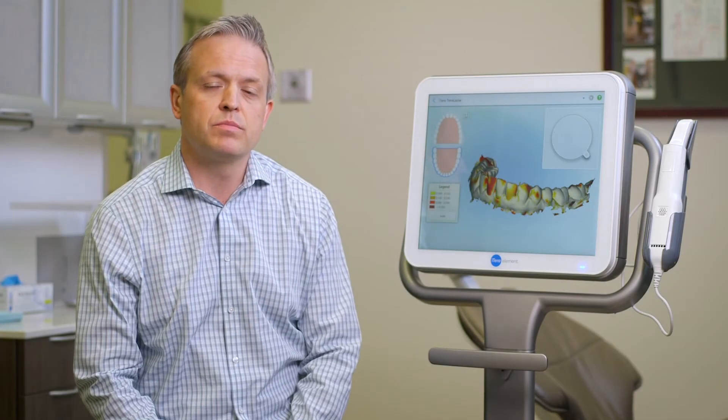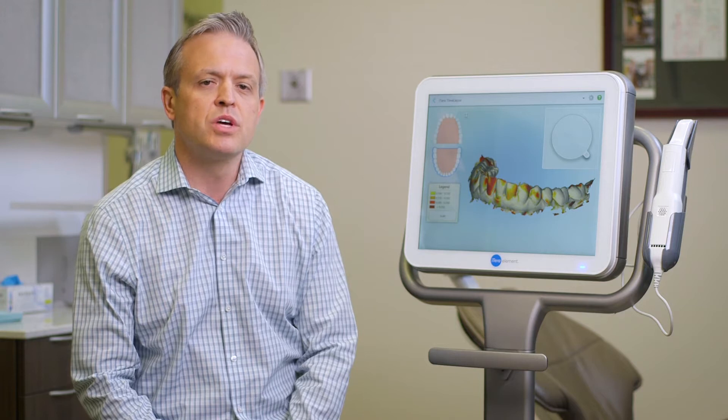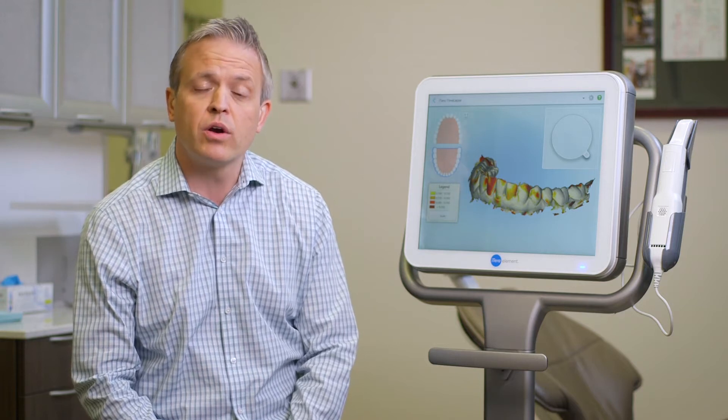iTero Element now comes with time-lapse technology. It generates 3D visualizations that let you monitor and show your patients changes in tooth movement, tooth wear, and gingival recession.